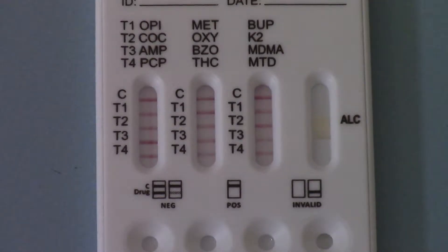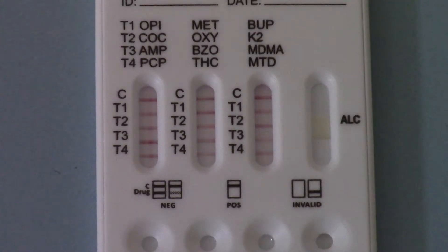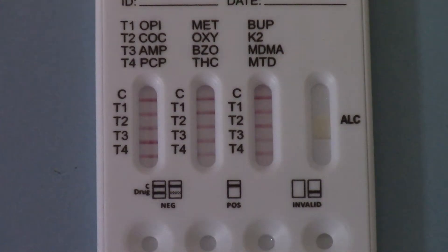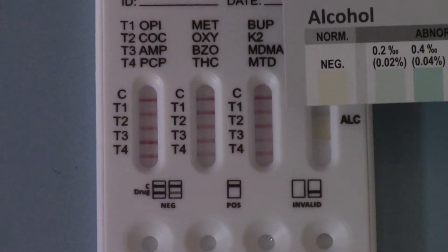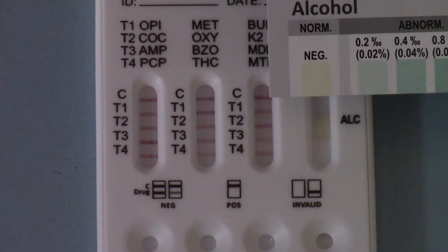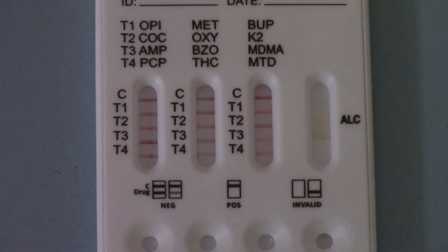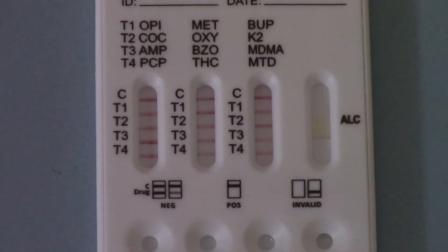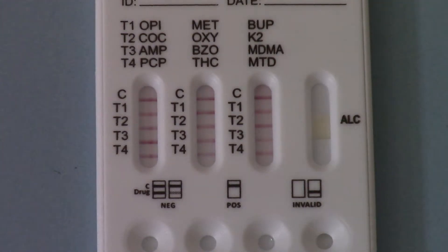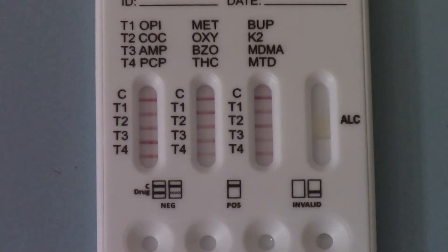So this sample is negative for all 12 of those drugs. And if we compare the color on the alcohol test, there's been no change since the test was run from the negative result. It's a nice pale form color indicating that there's no alcohol being detected in the saliva sample either. So this is an all-negative clear saliva test.